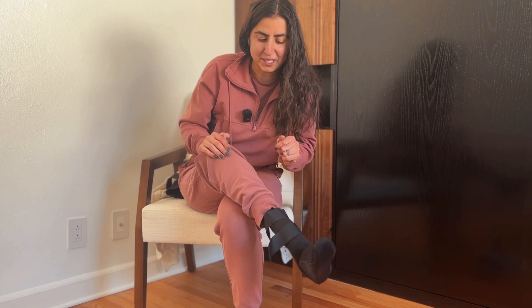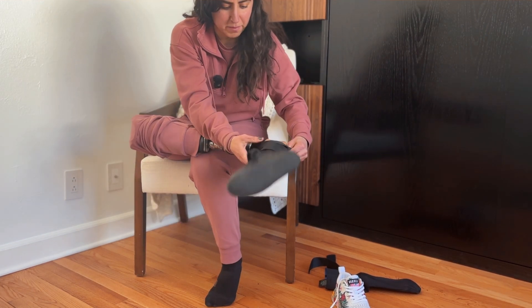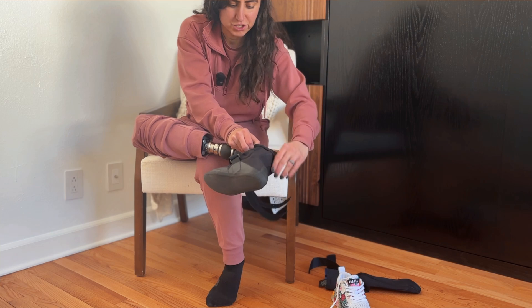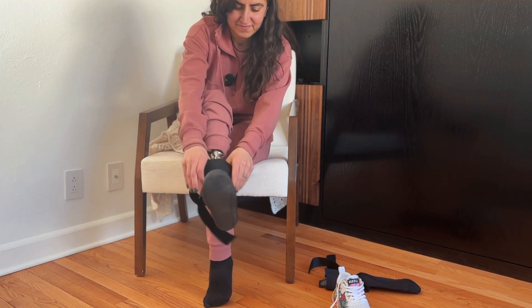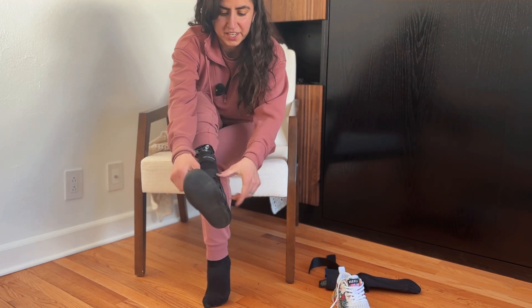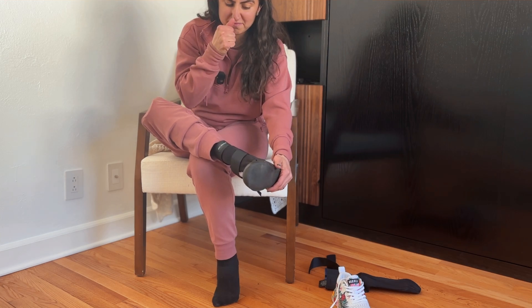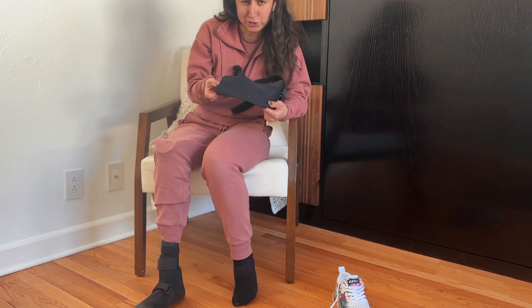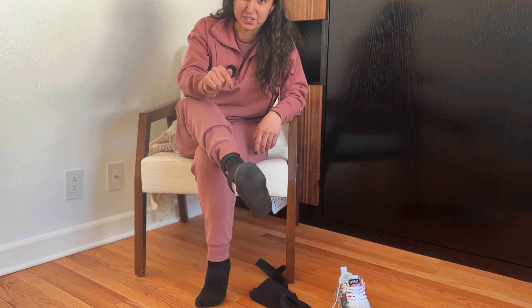That's all great in theory, but I want to try to damage my foot. I'm going to put on the Pro Armor Plus so I don't have to worry about taking on or off a shoe — I want to get these wet and dirty. I think the Pro Armor Plus is easier to get on. The structure of the foot just makes it a little bit easier. The Lite is like putting on a tight, stiff sock — doable, not a huge deal, especially if you want to be wearing shoes, but the Plus is definitely easier to get on and off.